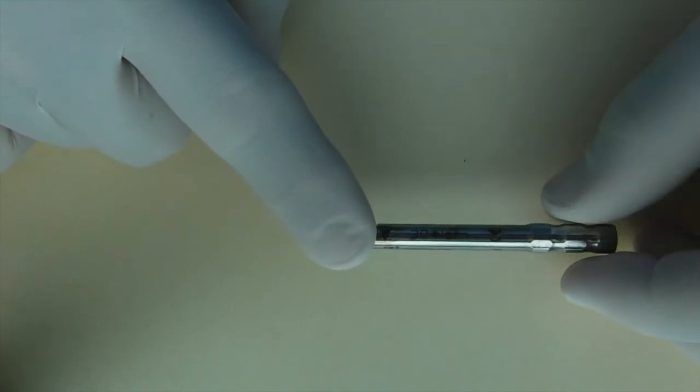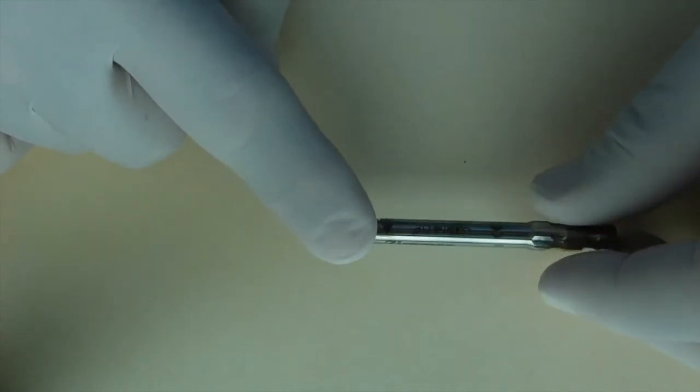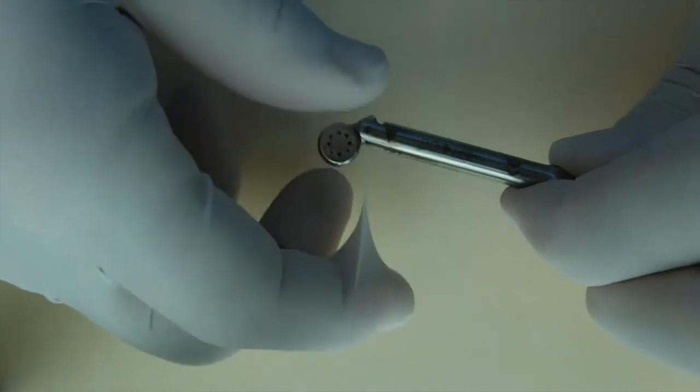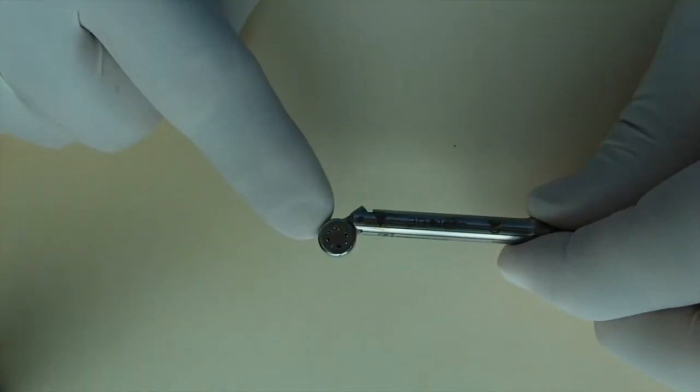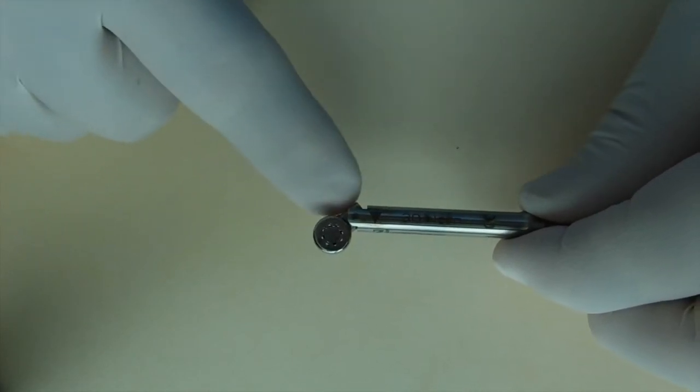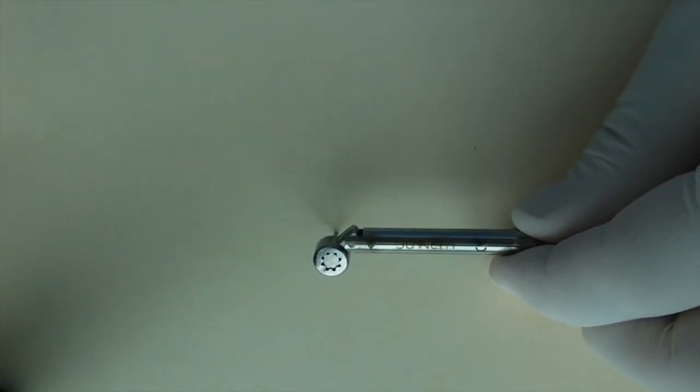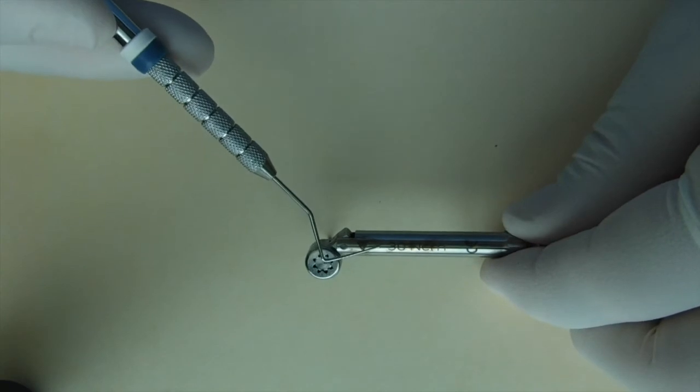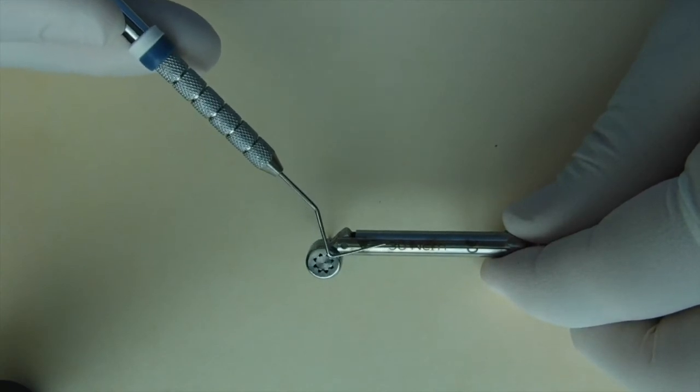One finger goes on top. Apply the torque and force until the system deflects or snaps or breaks. And that's how you know this particular torque has been achieved. These types of torque wrenches come in various torques. That's what happens to be 30 newton centimeters.